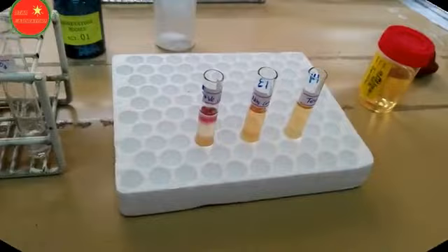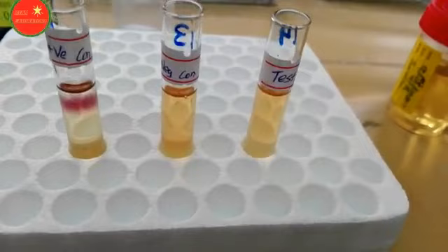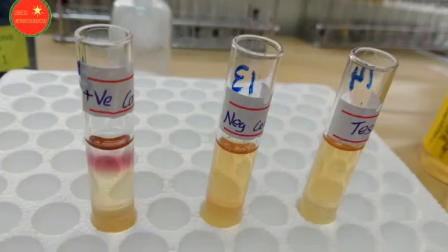For results interpretation: in the case of a positive sample, we can observe a permanganate purple color ring at the interface — just below the strong ammonia layer. In the case of a negative sample, there is no color change. The test sample in this case also shows no color change, so it is negative.